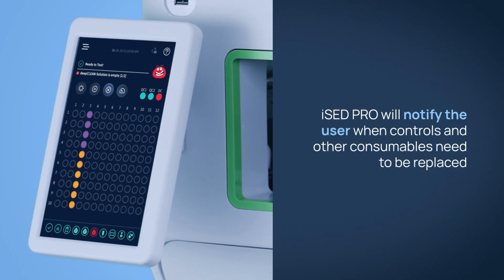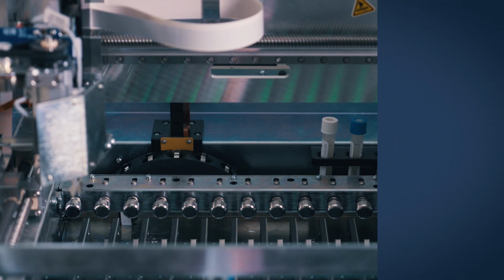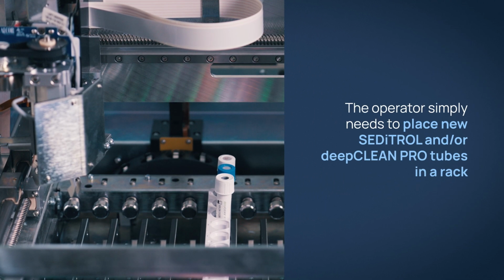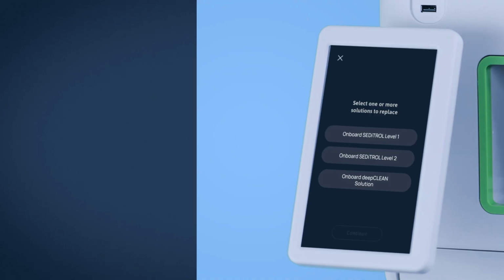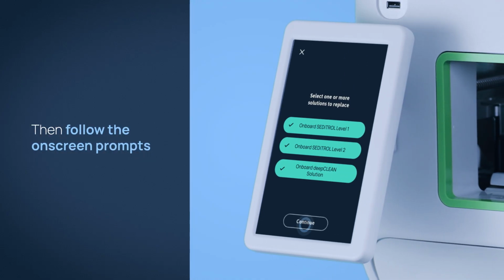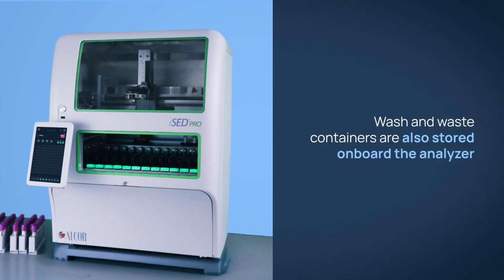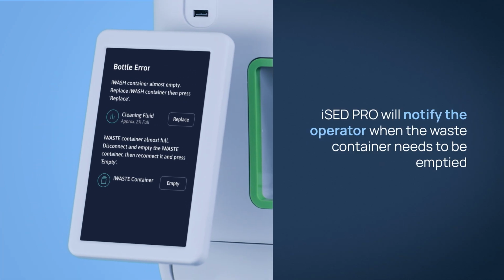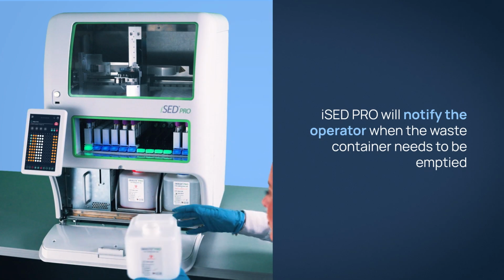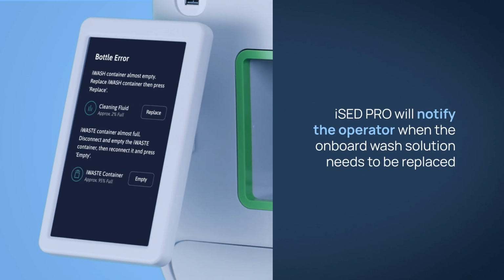iSED PRO will notify the user when controls and other consumables need to be replaced. The operator simply needs to place new Seditrol and/or Deep Clean Pro tubes in a rack, then follow the on-screen prompts. iSED PRO will notify the operator when the waste container needs to be emptied. iSED PRO will notify the operator when the onboard wash solution needs to be replaced.